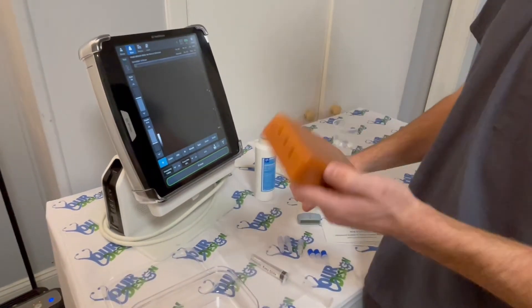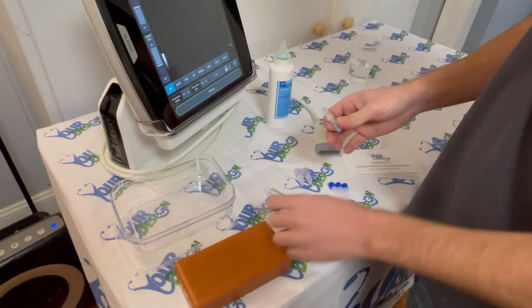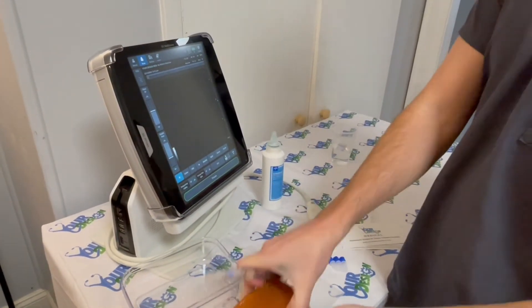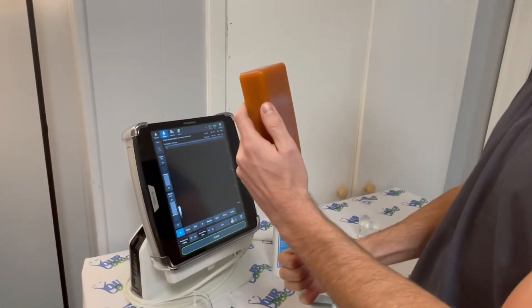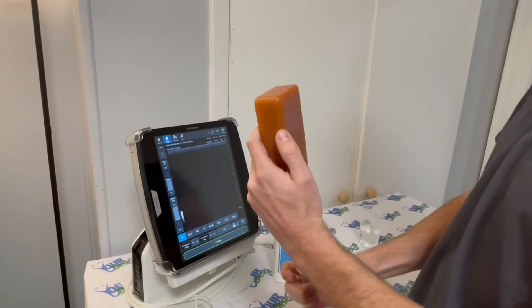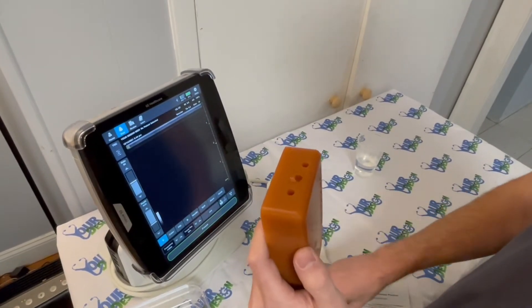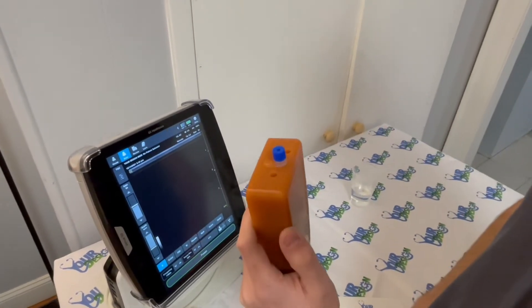In order to fill your phantom, simply take water or any ultrasound fluid, connect it to a fitting, and fill the ultrasound phantom up slowly and gently until you see water come up to the tip. Once you do, place the other cap, and this will be repeated for all the vessels.